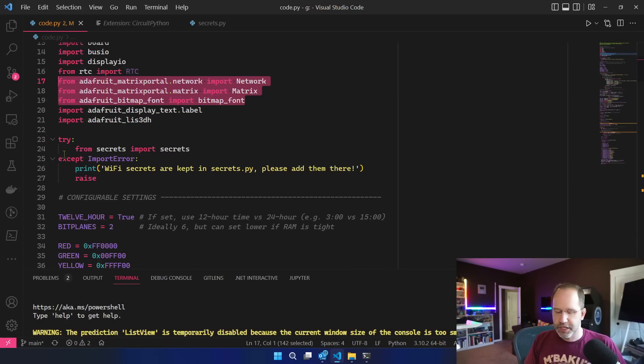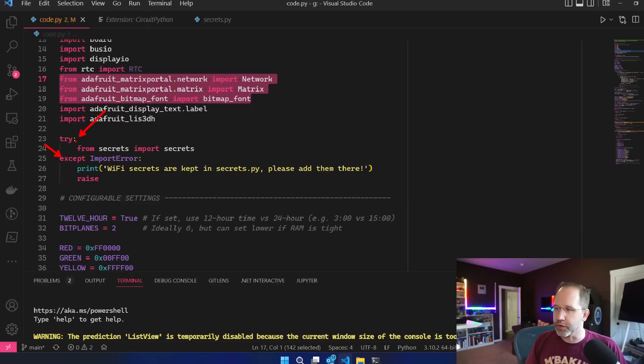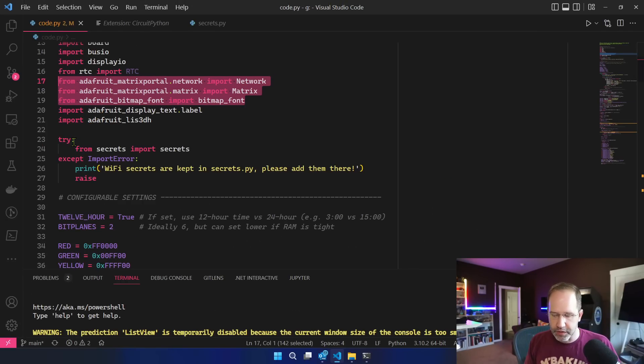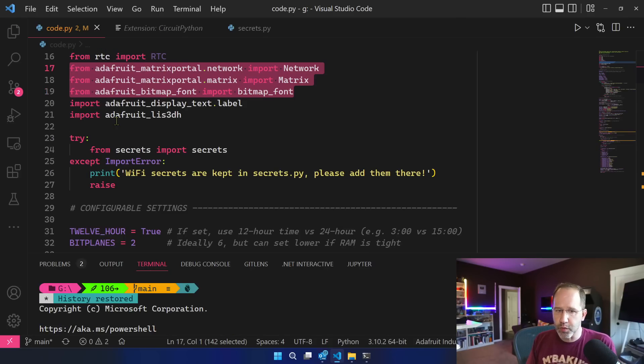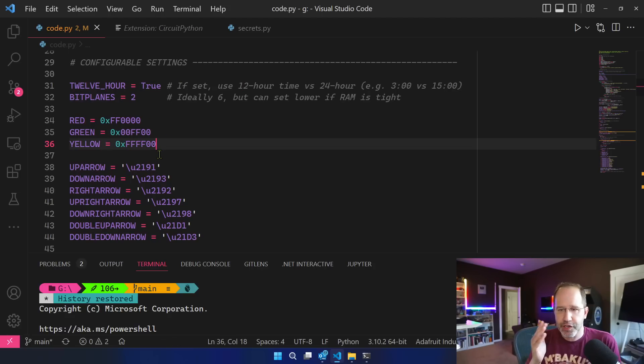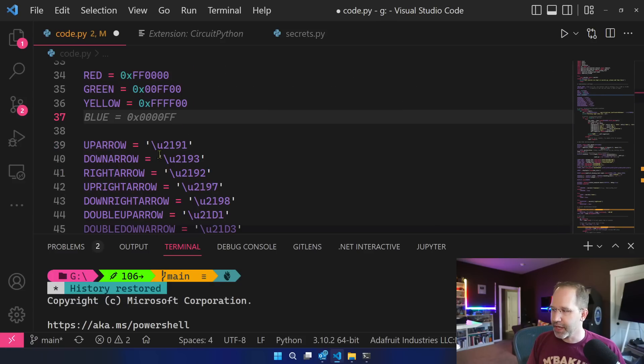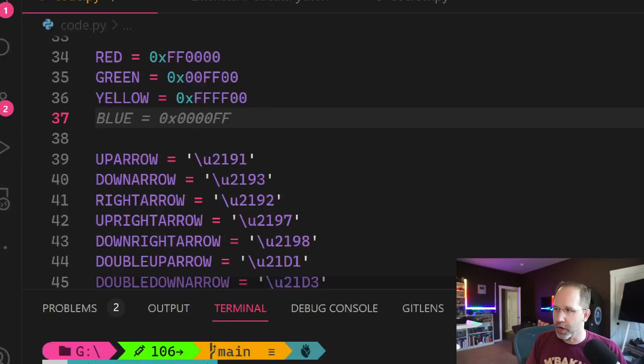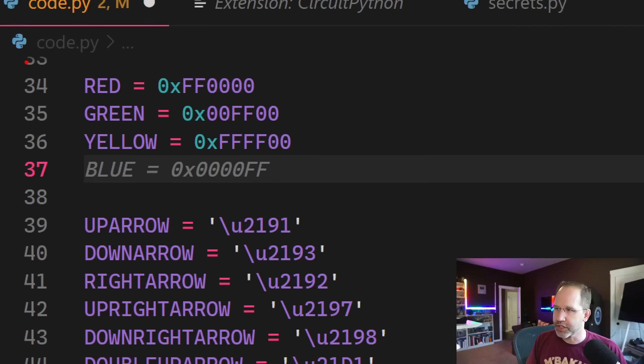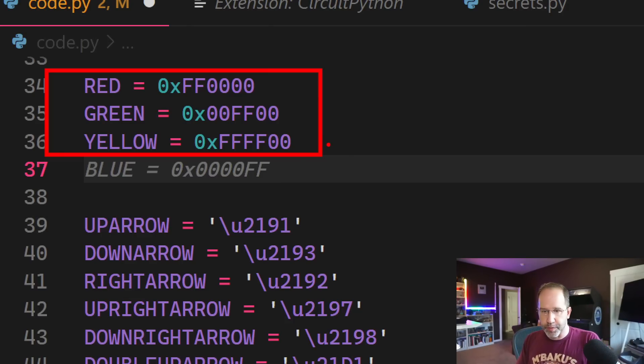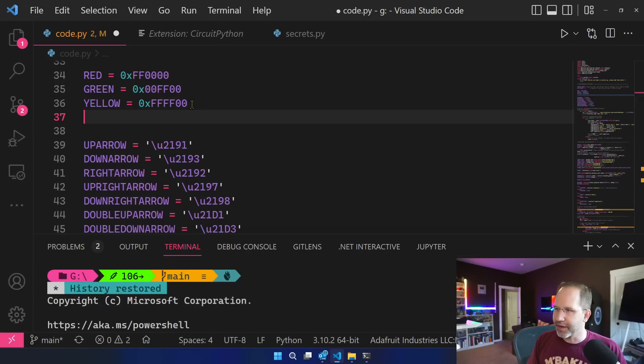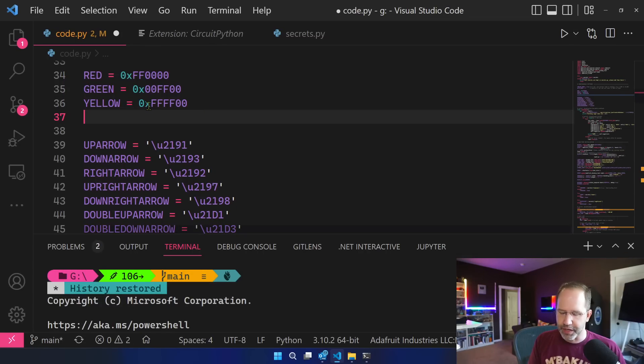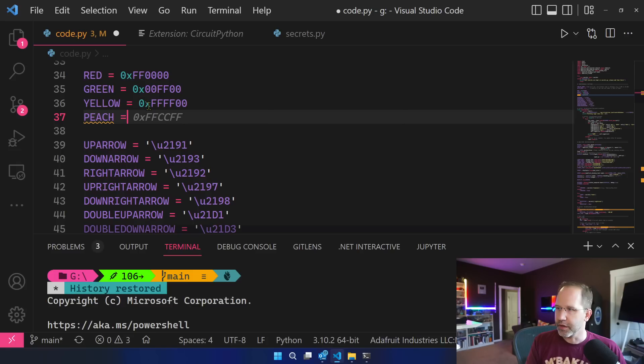Then I see their try-catch called try and except. So here I'm importing secrets, I'm keeping my Wi-Fi password and details in a secrets.py. Then this is pretty cool, I'm also using GitHub Copilot and in doing that GitHub is intuiting what I want to do. So I just typed in red, green, yellow because I want the blood sugar to show up red, green or yellow depending on whether or not my blood sugar is good. Notice how they're assuming you might type blue next and then they're putting that there for me. Maybe I could do peach and then they figure it out for you. Then you can just hit tab.